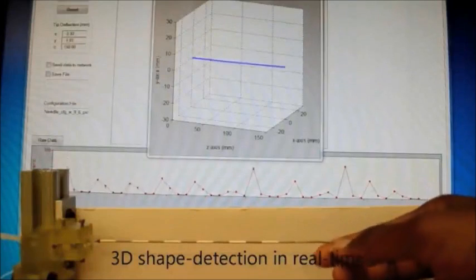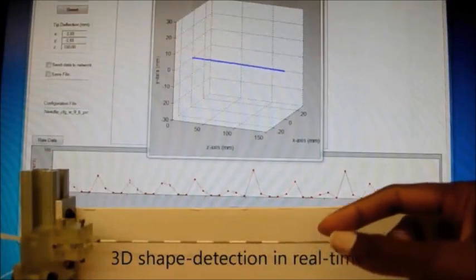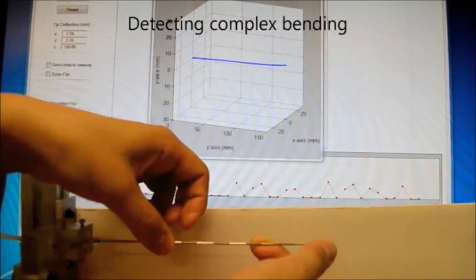We demonstrate an MRI-compatible needle with embedded fiber Bragg grating sensors that can predict its 3D shape and forces on its tip in real time.